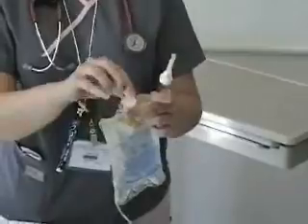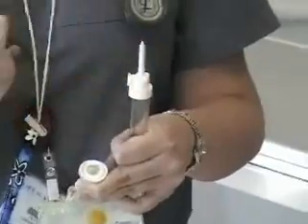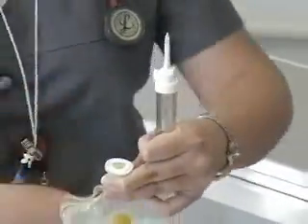So you go ahead and take this right here, which is a nice tab, and you give a good tough pull on it and that comes right off. And here's your spike — these are very sharp, so you want to keep this on until you're ready to spike. This is a protective covering.